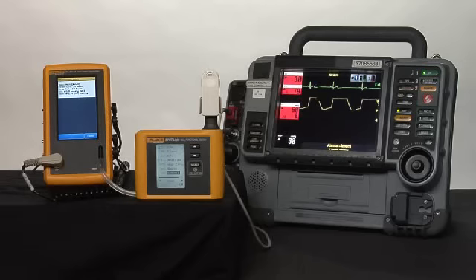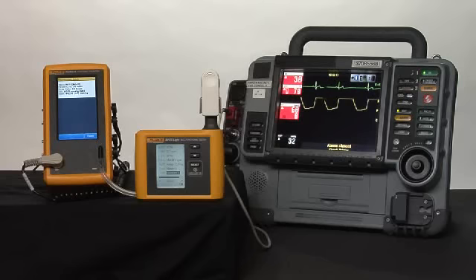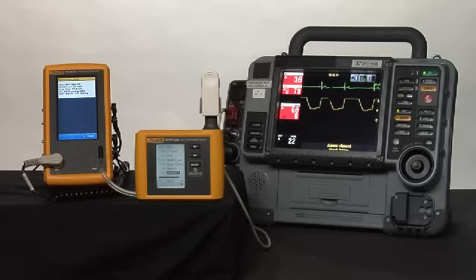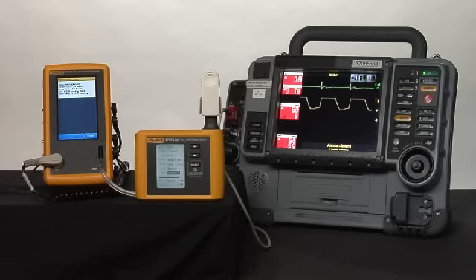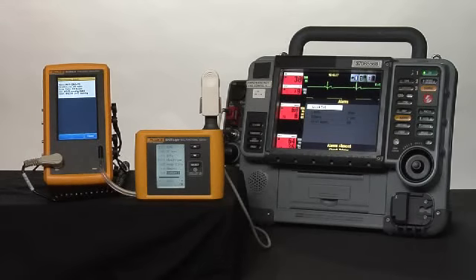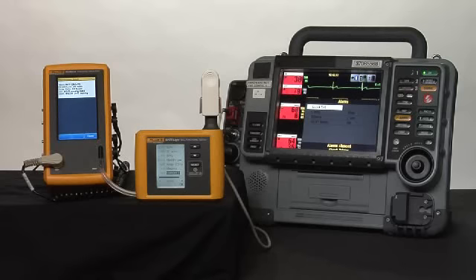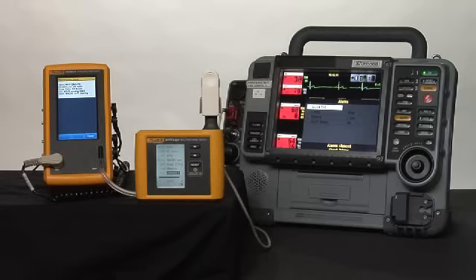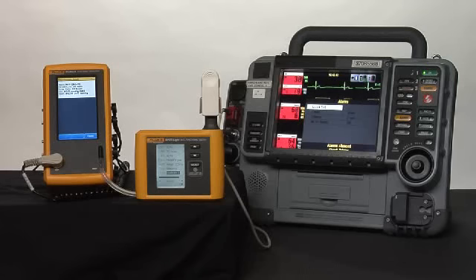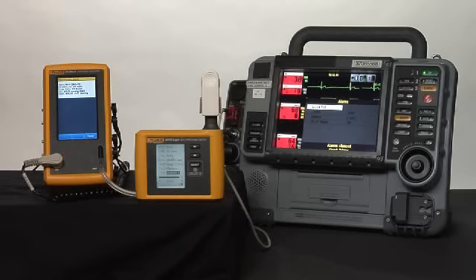As soon as the NIBP reading is complete, we have completed a fairly quick, complete evaluation of this patient monitor as to whether it's working or not working — both high and low alarm limits and so forth. We can see that the patient monitor is fully functional and we'll leave it in clinical use. If it were faulty, we would remove it from clinical use, replace it with a different patient monitor. Very quickly, you can see we've done a full check using both the ProSim 4 and Spotlight — fully portable, very functional parts of the ProSim family.